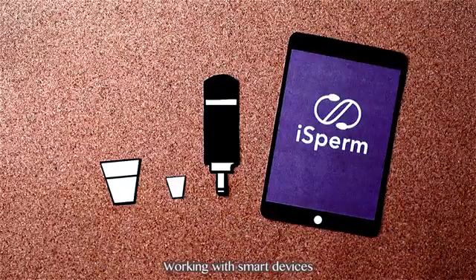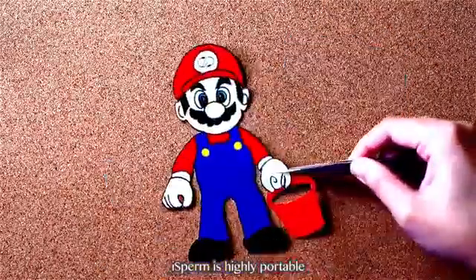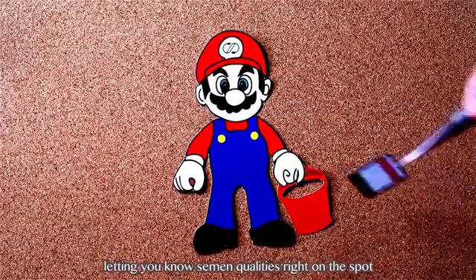Working with smart devices, iSperm is highly portable, letting you know semen qualities right on the spot.